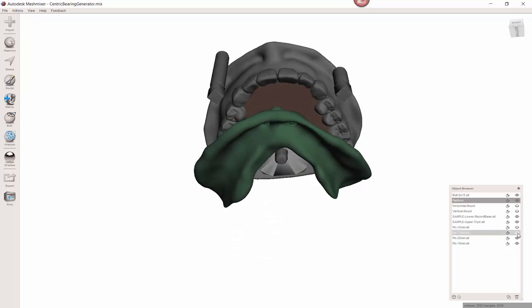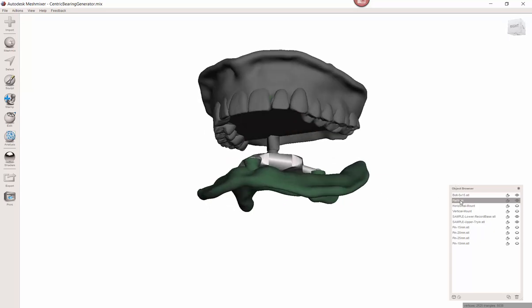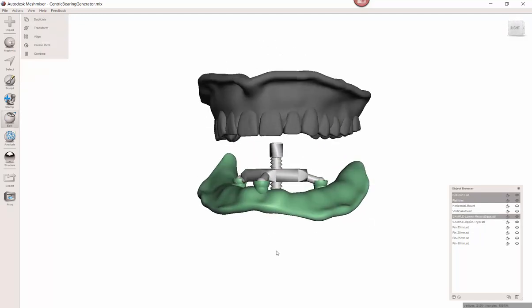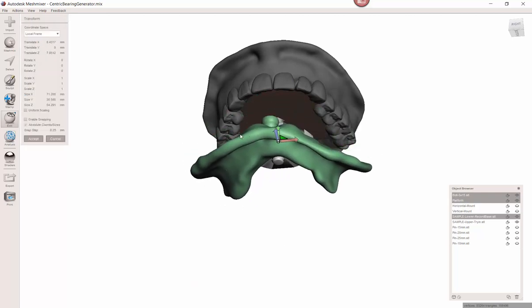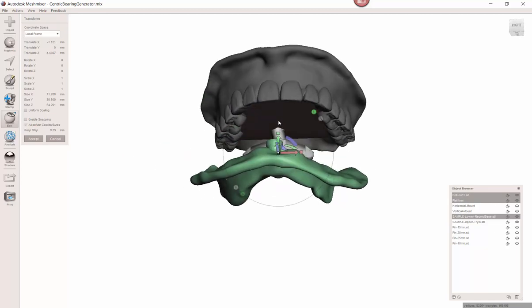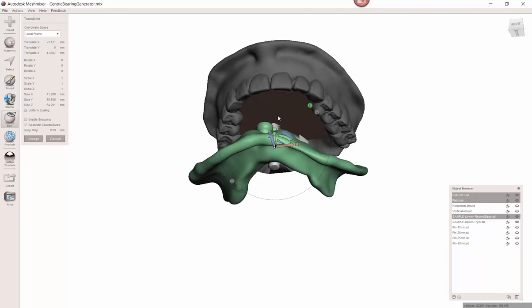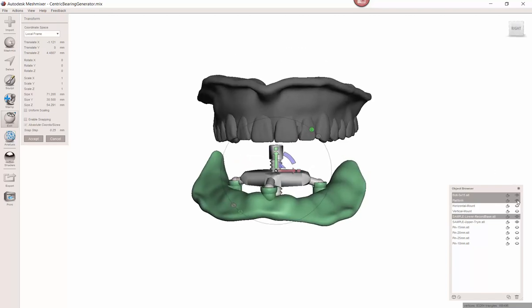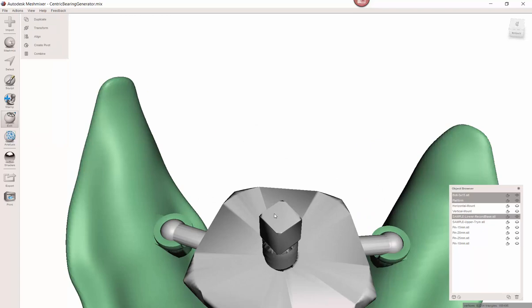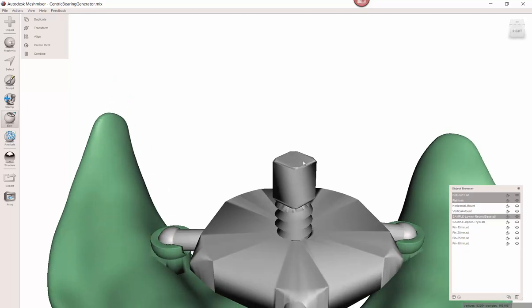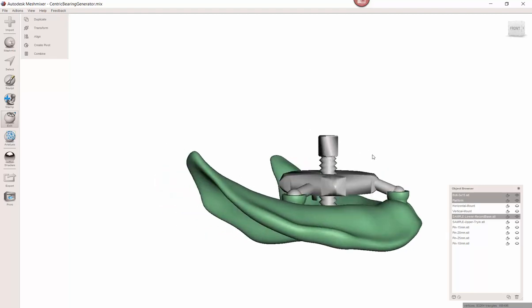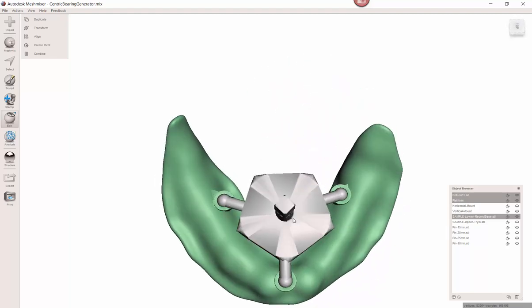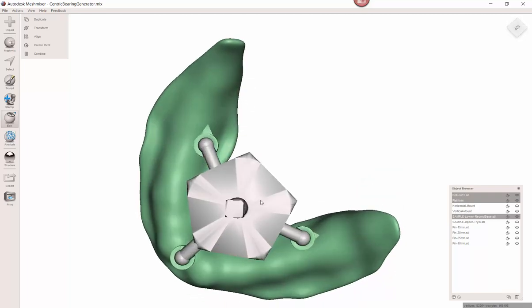So a couple of things I want to point out. In your download, you have a variety of pins. You have four different pins of varying lengths. That way, if you find that you need a much smaller one or a much taller one, you have that option available to you. So they, I have I believe a 10, 15, 20, and 25. So the one that's included in here is the 15 millimeter. I don't think it's too often that you're going to need more than that. I don't want a long distance because any sort of play you get in here is going to get magnified. So try to keep it, I would rather raise the platform higher than to have a really long screw. So I wouldn't recommend using the 25, but I gave it as an option.